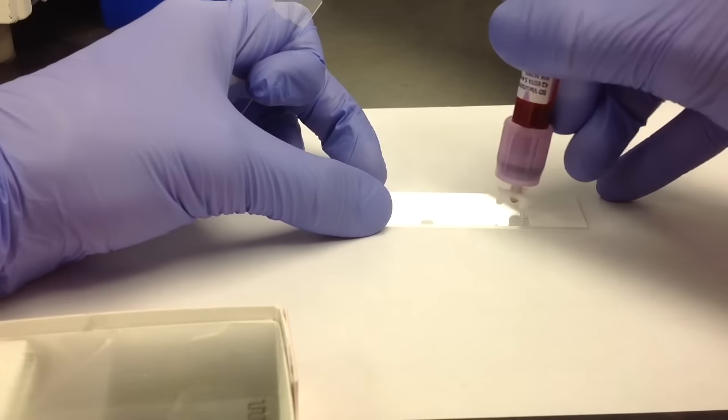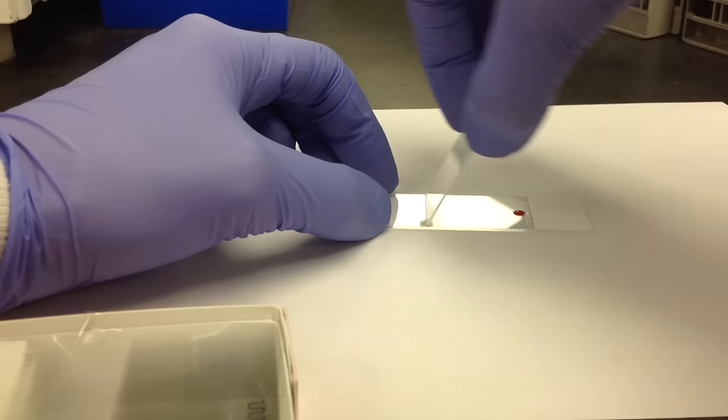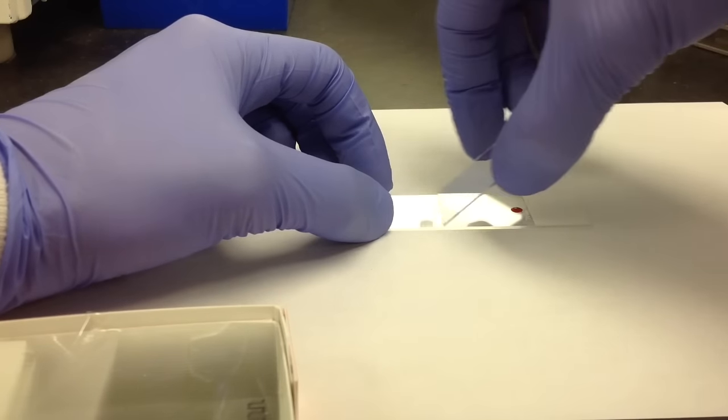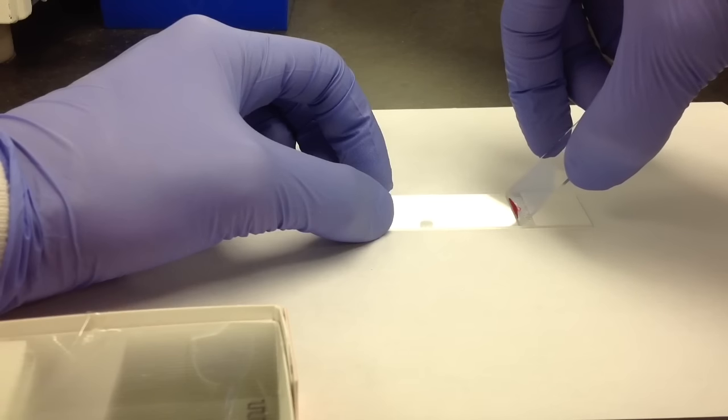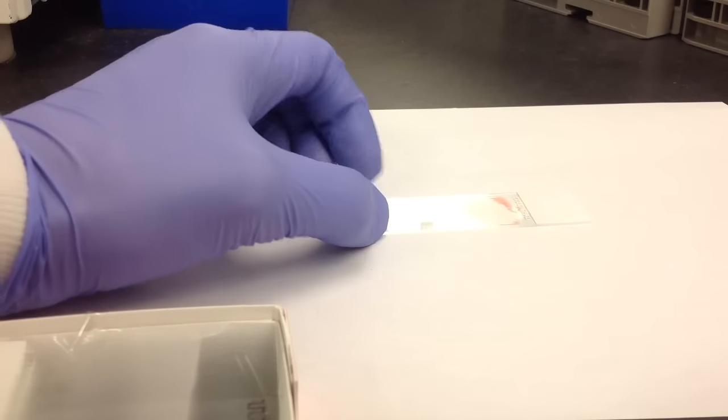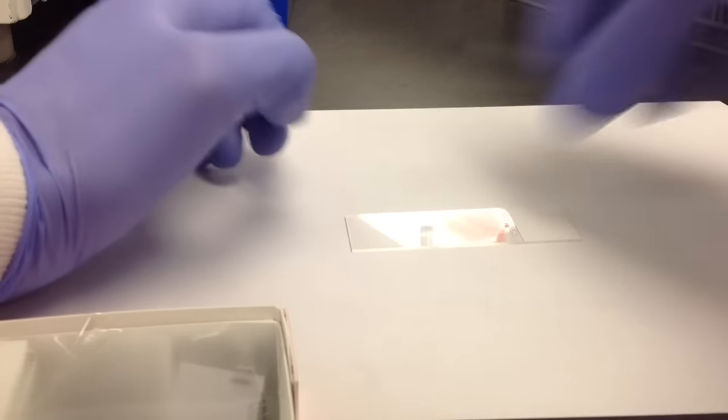You can also make a slide thicker or thinner depending on the angle of the second slide. If you want to make it thicker, just hold it at a higher angle and that makes the smear much thicker.